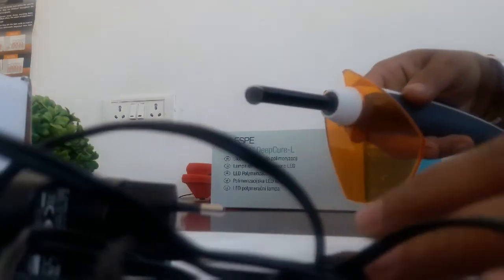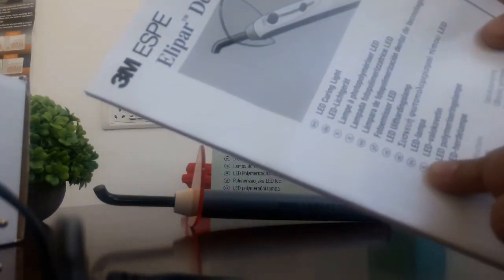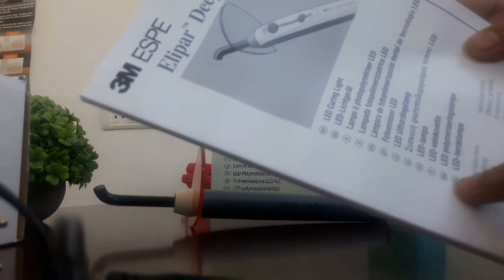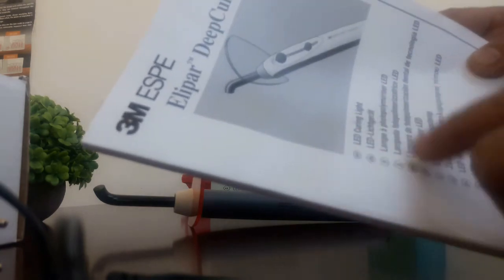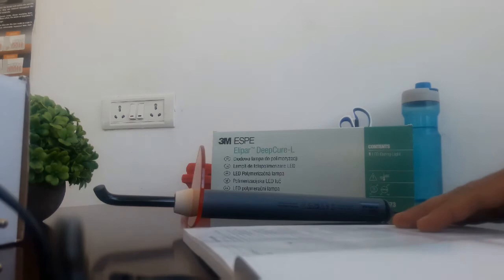We get a quick start guide from 3M. All the languages have been written, so they deliver to all these countries and have a market in many countries. This is a US product and it's made in Germany.